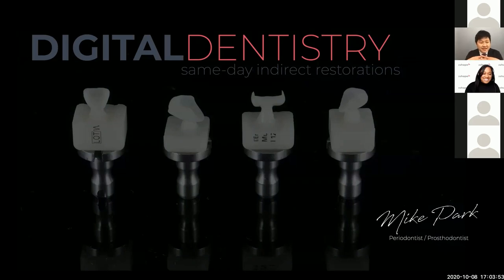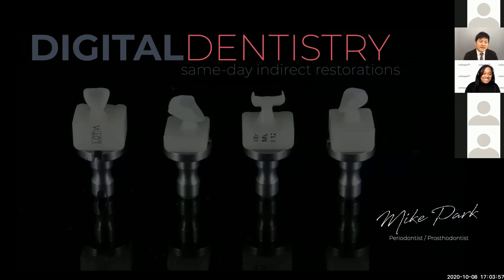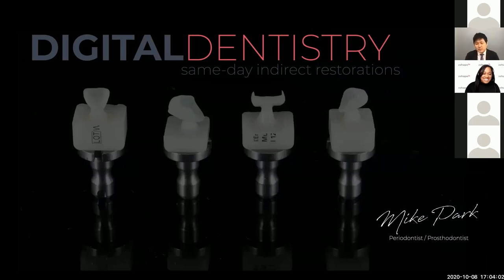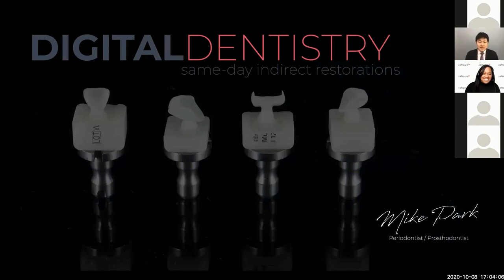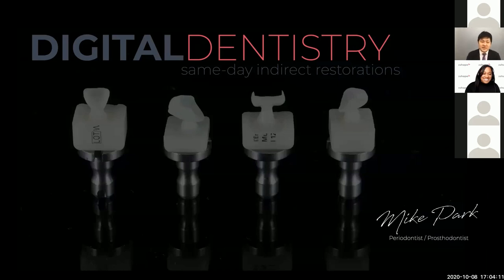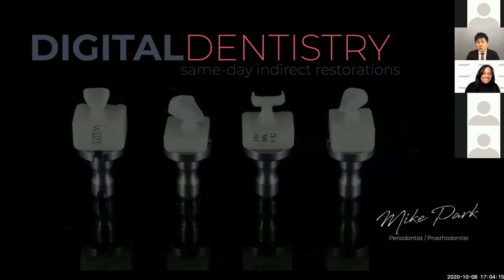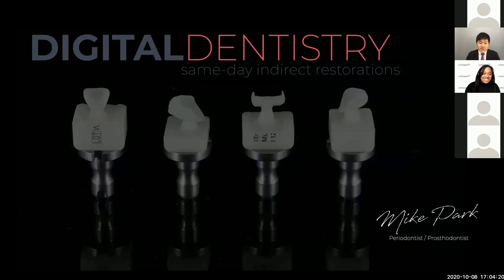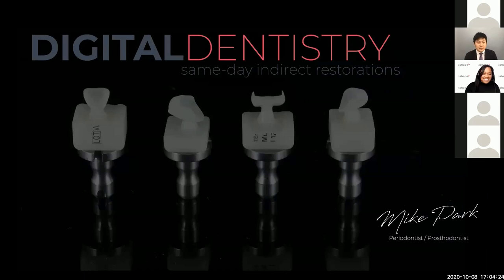Hello everyone. I would like to welcome you to today's webinar. My name is Mike Park — I'm a periodontist and a prosthodontist. Today's topic is digital dentistry and same-day indirect restorations. I would like to share with you the digital workflow and the clinical workflow of doing chairside same-day indirect restorations, and also share some clinical tips and experience.